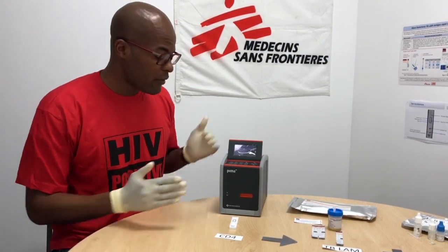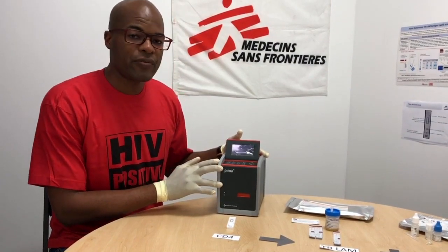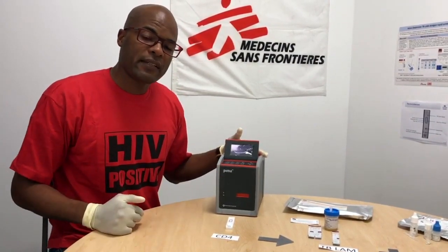Our screening package that we have implemented and are continuing to roll out starts with assessing the CD4 level. If the CD4 of the patient is less than 200, it then triggers two very important tests thereafter: the TB LAM and the CrAg. I will show you now how to do those rapid tests.